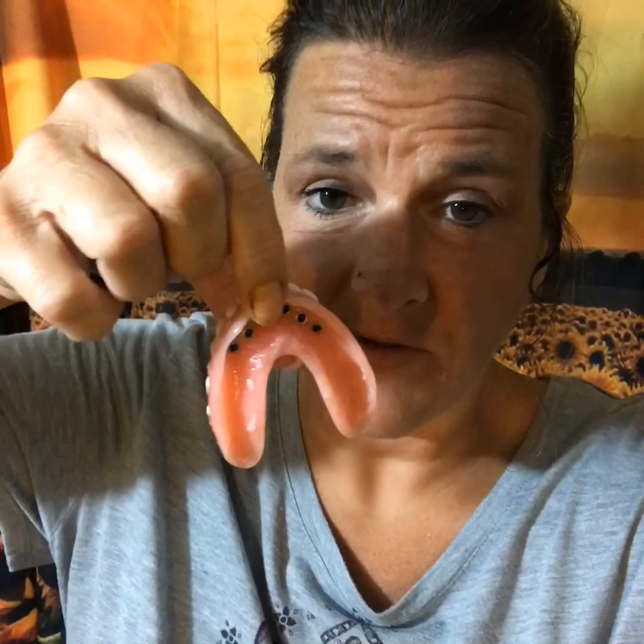The O-rings are the little holes in the denture — I'll show you. The O-rings are the holes here that the implants snap into. Alicia Glitterhead Dental Diaries was told that soaking implant dentures would damage those O-rings, and they would have to be replaced a lot sooner than the normal six to nine months.